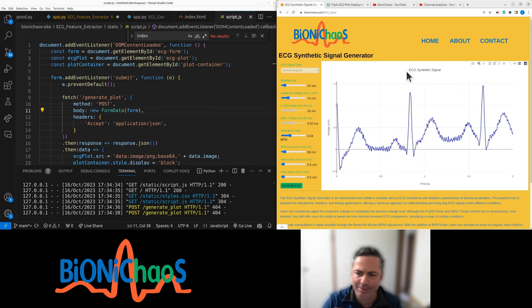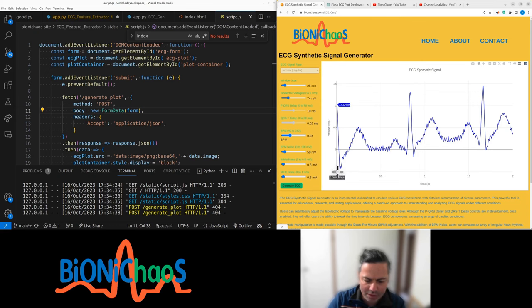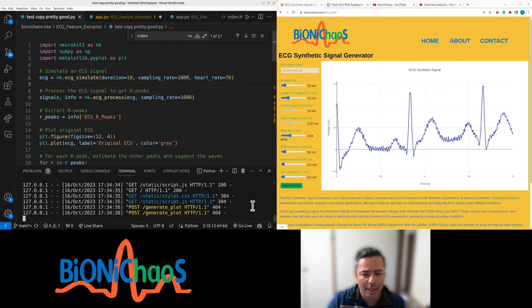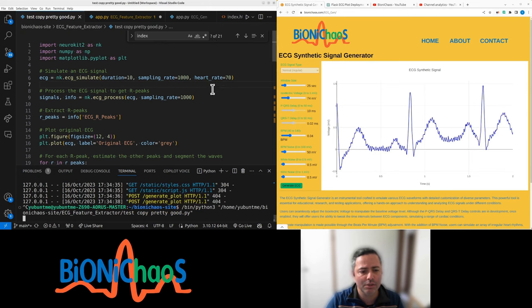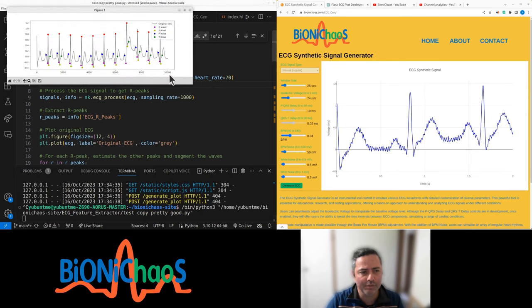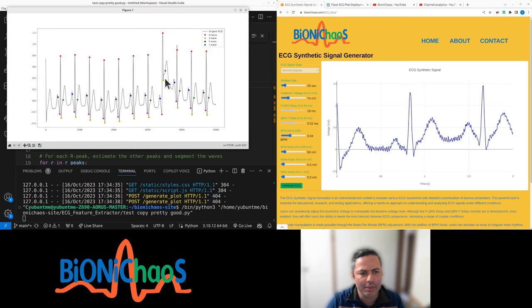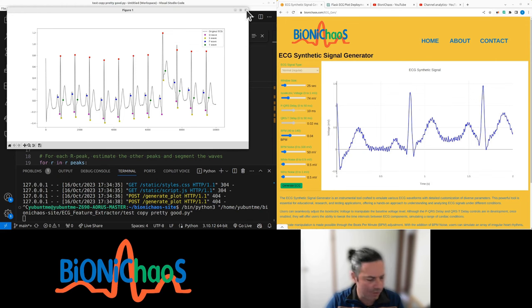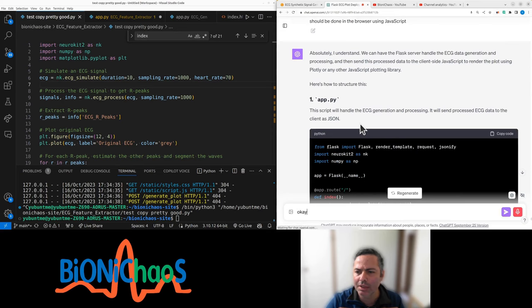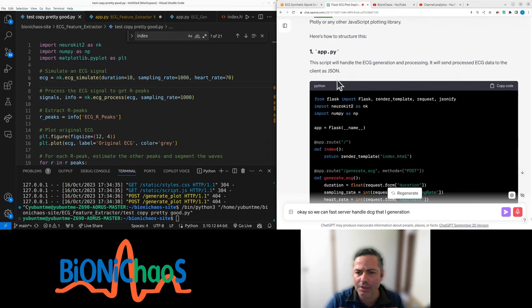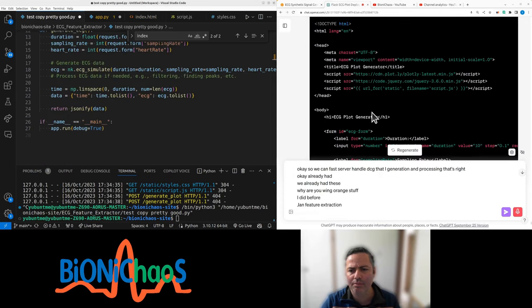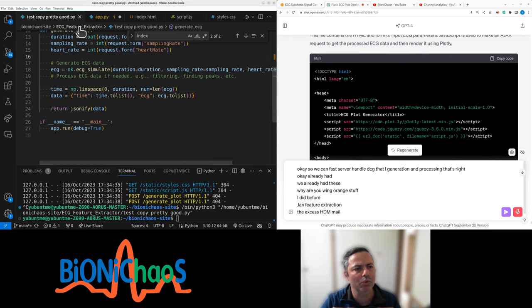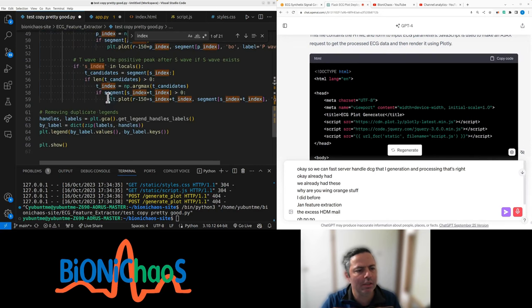Now I've got different colors or just dots on the peaks and troughs for the P, QRS, T. It should look like that. No idea what happened there, but there's some noise variability in it. Still labeling. Those are a bit off, so we'll have to correct them later. Flask server handles the ECG data generation and processing. Wait, no, I have changed this file.